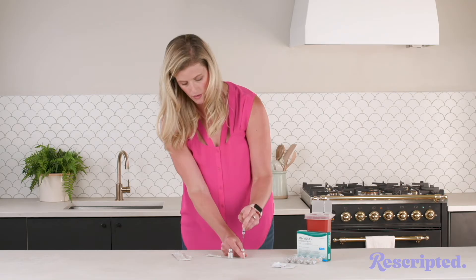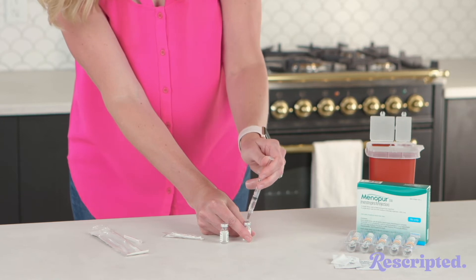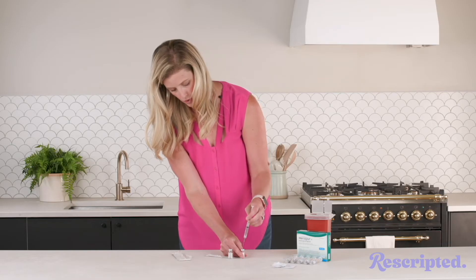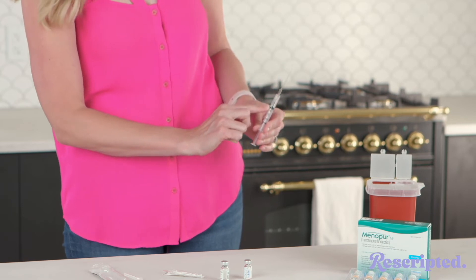You don't have to inject it into yourself. You're going to go into the sodium chloride vial, push that needle to the bottom, and just pull back until you get over one milliliter. Don't overthink it — it's just sodium chloride. One milliliter of fluid is all you need.